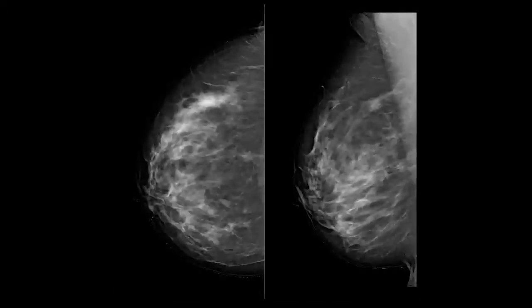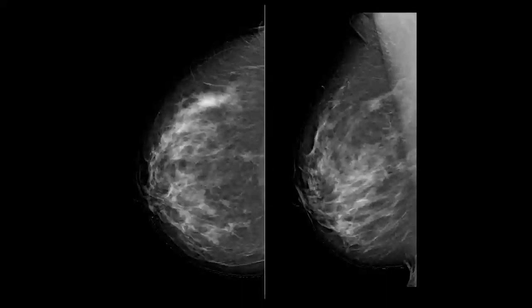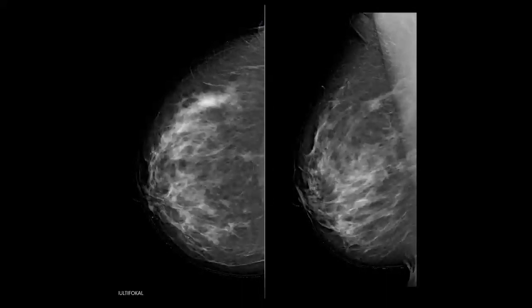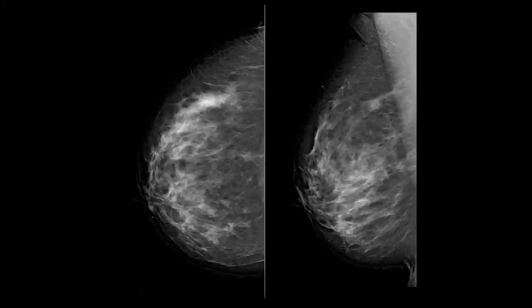Hello everybody! What I want to show you today is a comparison between the plane mammography — in this case FFDM of the right breast — and the corresponding Mama CT.